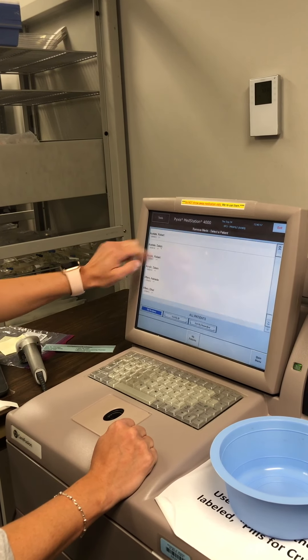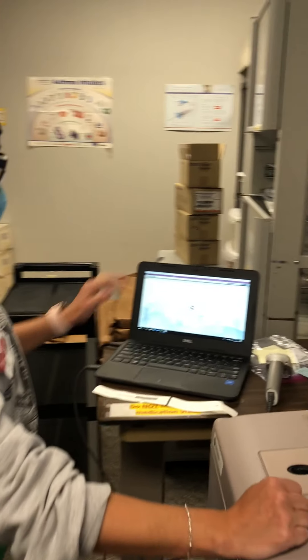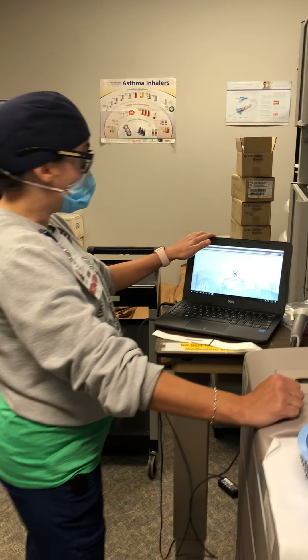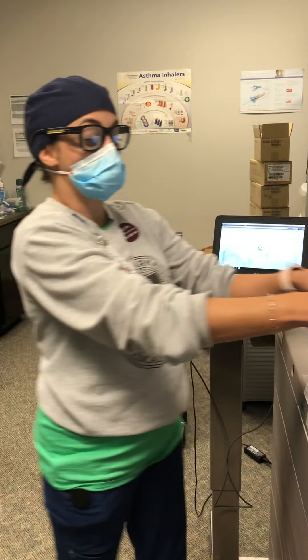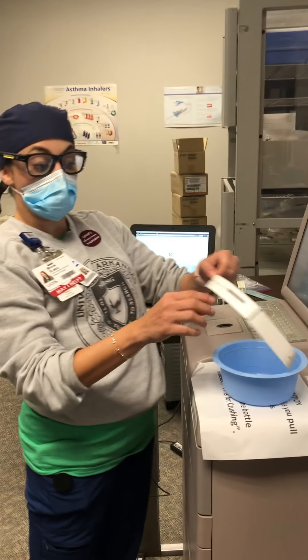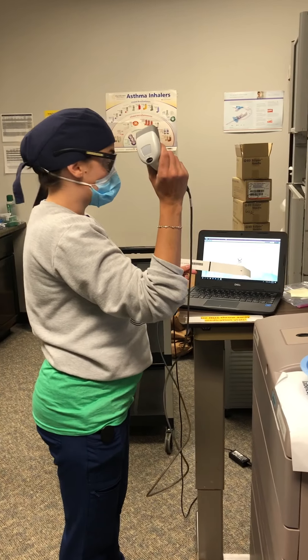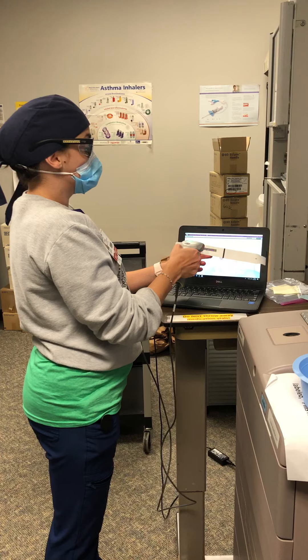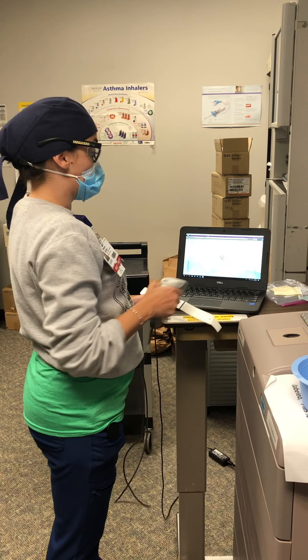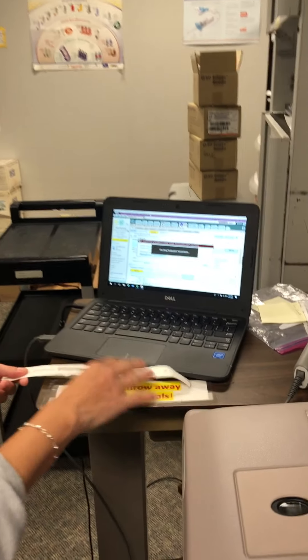Hit Remove and now a whole list of patients will come up. Our next step is to move to our computer. We're going to take the wristband that was given to us and our bucket, and we're going to use the scanner attached to the computer to scan our barcode. When we do this, our patient should pop up.